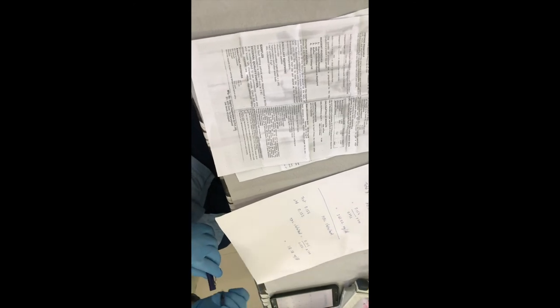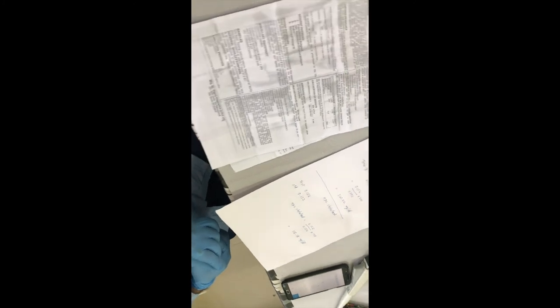This result of 118.18 mg/dL is above 60 milligram per deciliter, which is good. Higher HDL means better cholesterol transport to the liver, so the person is not at risk of coronary heart disease.